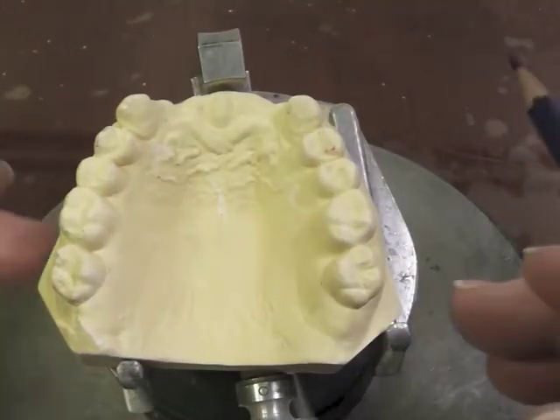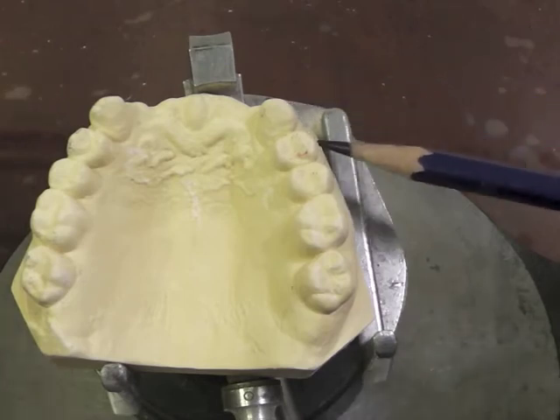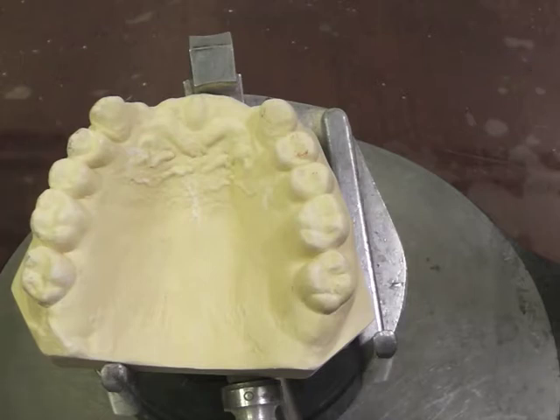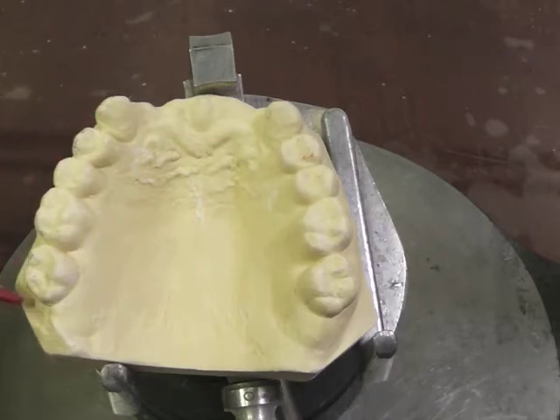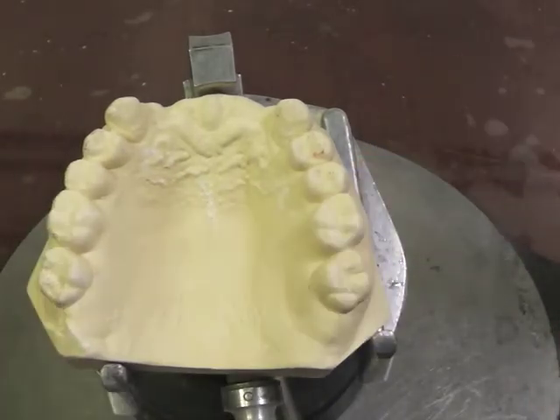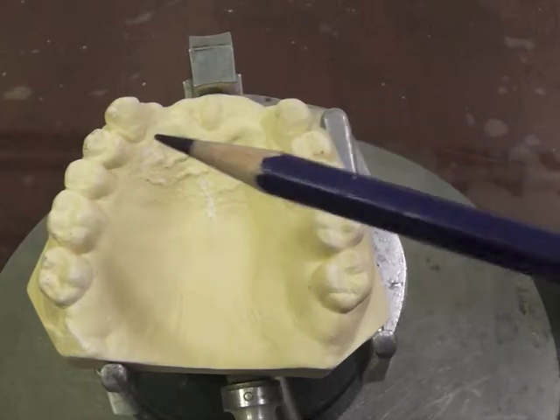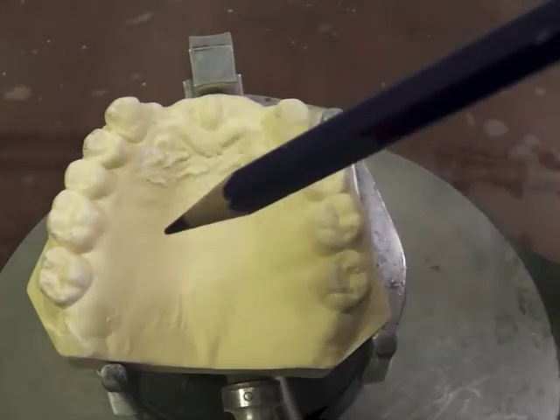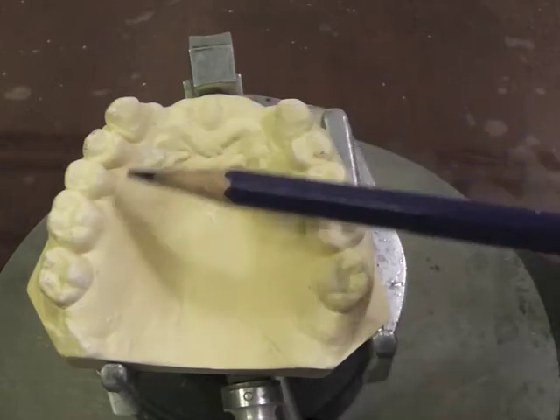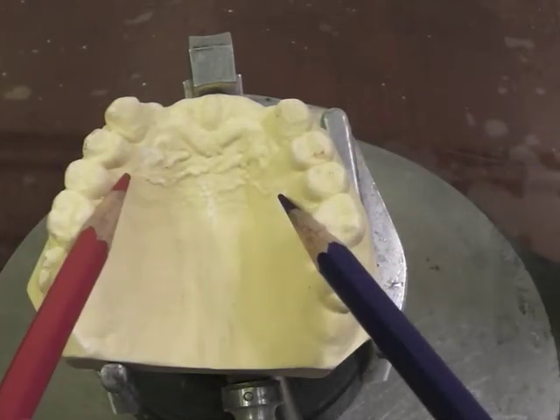We have to consider balanced retention when designing a partial denture. Balanced retention means if we have buccal retention on one side of the arch — which we usually do on a maxillary because the teeth tend to lean buccally — then we would like buccal retention on the other side of the arch as well. That way we're grabbing hold of the teeth on each side and preventing the partial from lifting out. We cannot have buccal retention on one side and lingual retention on the other, or the partial denture would dislodge itself. On a mandibular arch we might have lingual-lingual retention on both sides — that too is balanced retention.